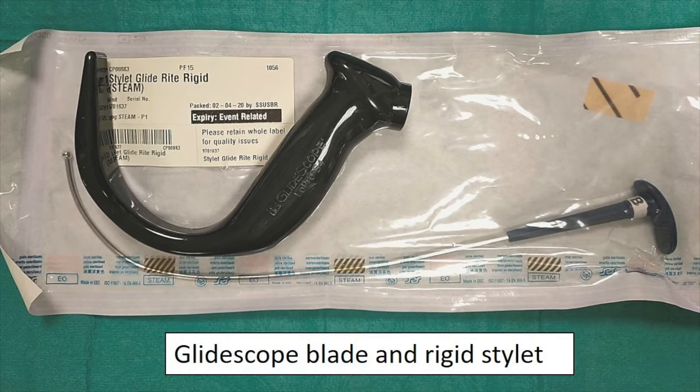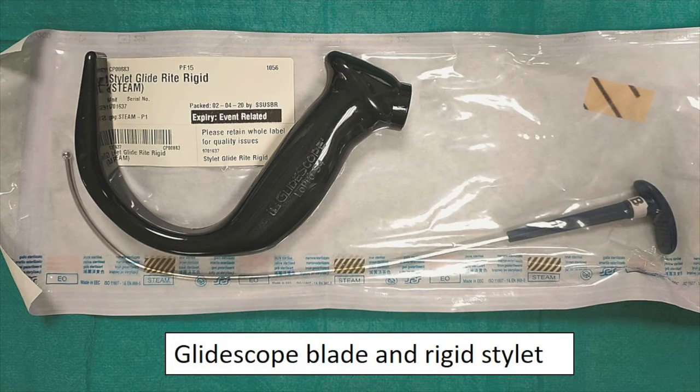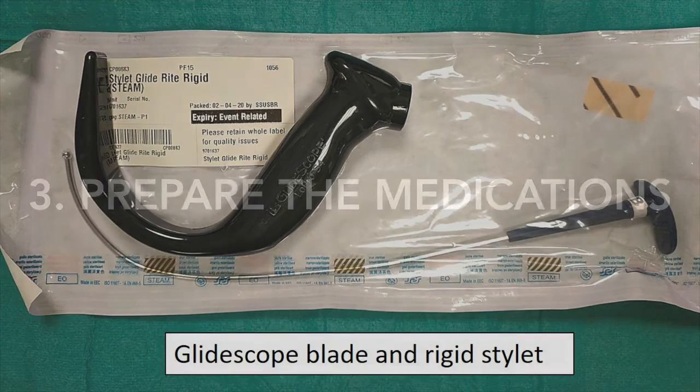This next picture illustrates the rigid stylet that is used with the GlideScope laryngoscope. Number three is to prepare medications. In the previous talk, we went through the various medications that we use for endotracheal intubation. Here, we thought we'd show everyone how these medications look like when they come in the vials unprepared.